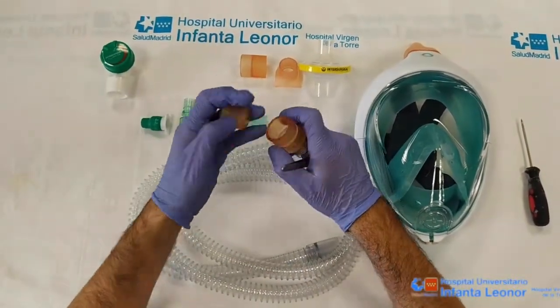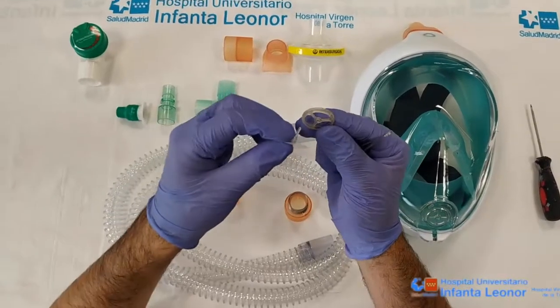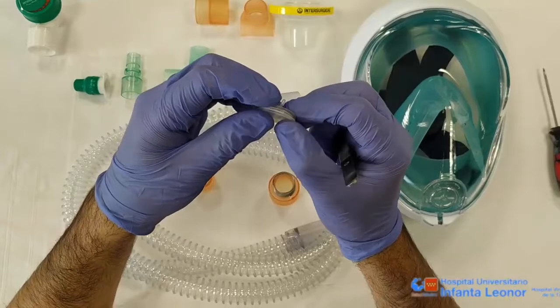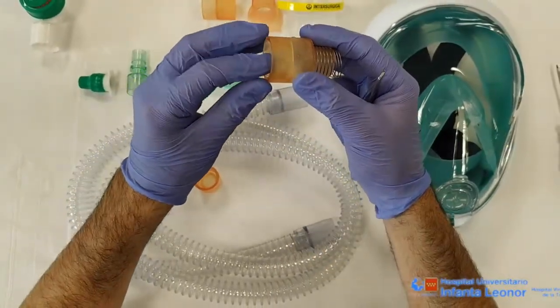The other internal membranes we place within the following group of parts to create the peep valve, from inside to out, permitting a controlled flow of exhaled air and giving pressure at the end of every breath.